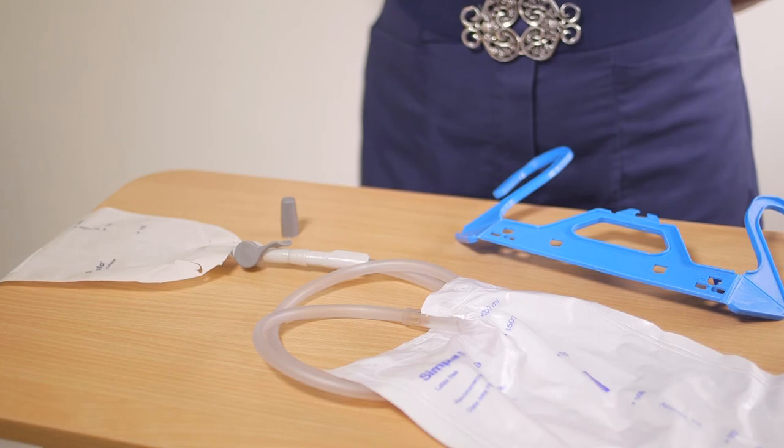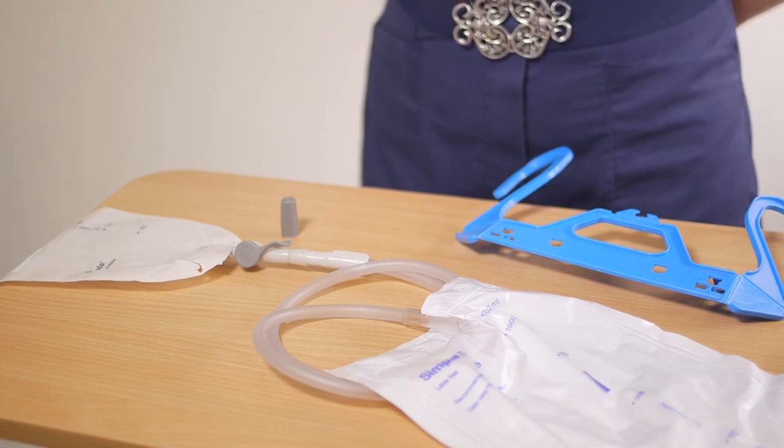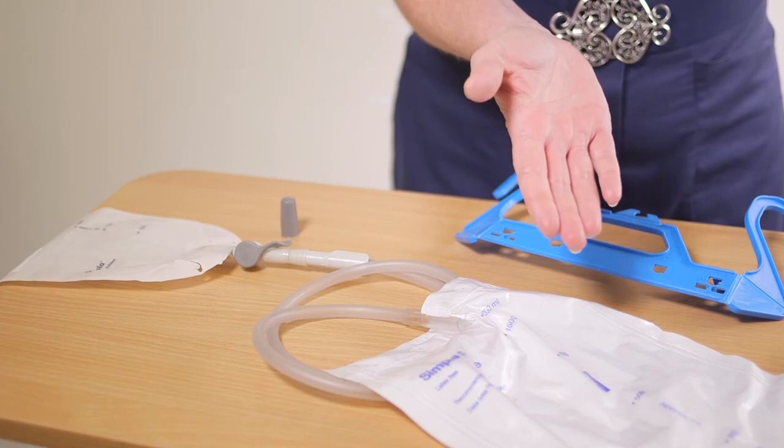Leave the leg bag open to allow for continuous drainage of urine from the leg bag into the night bag.